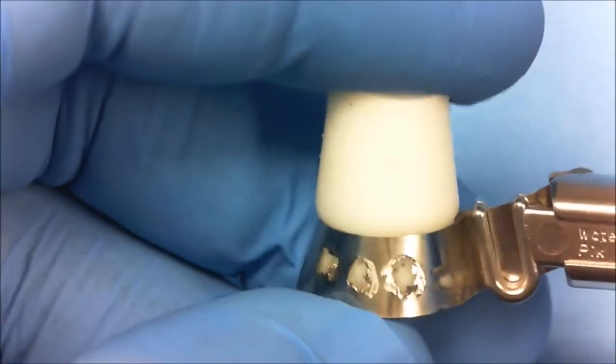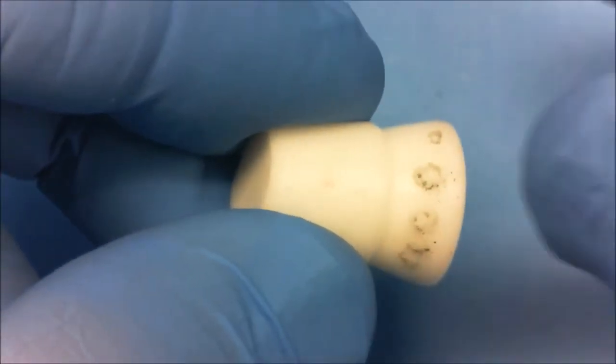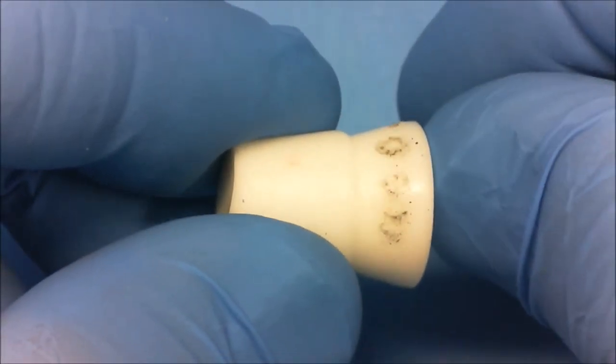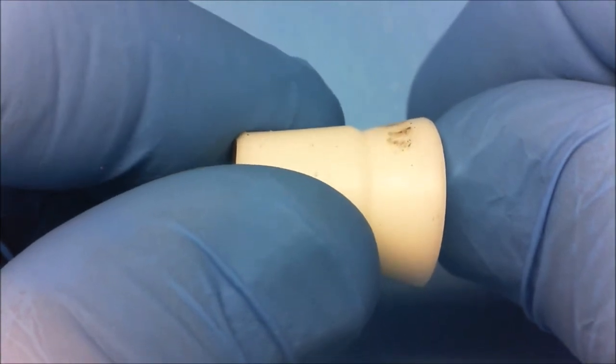To analyze your ability to make proper openings, remove the band and rotate the practice tool. You will notice that no indentations have been made. Everything is smooth.